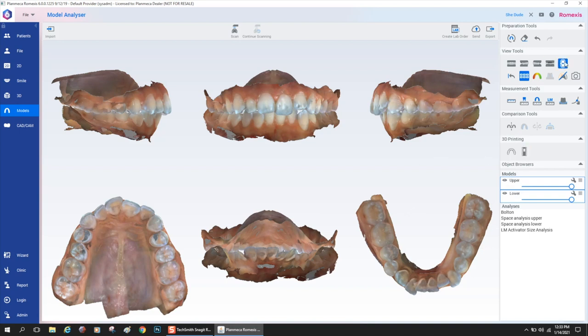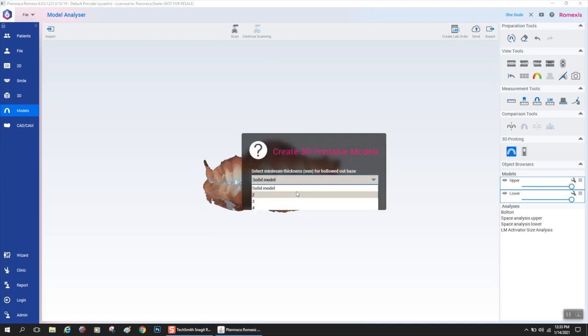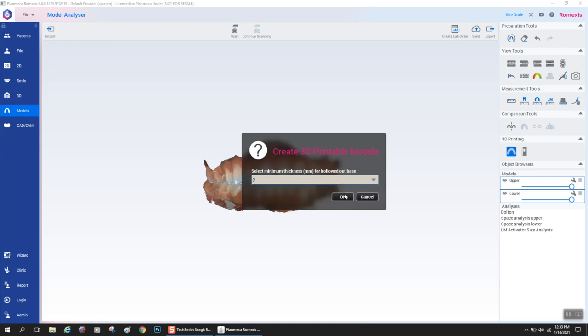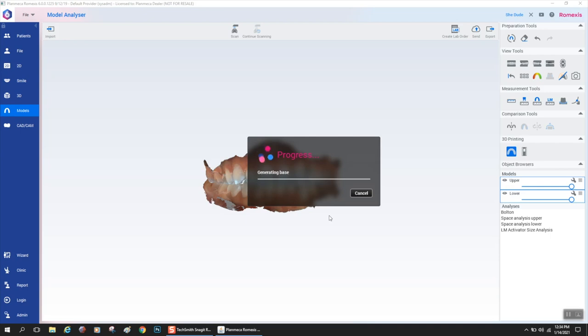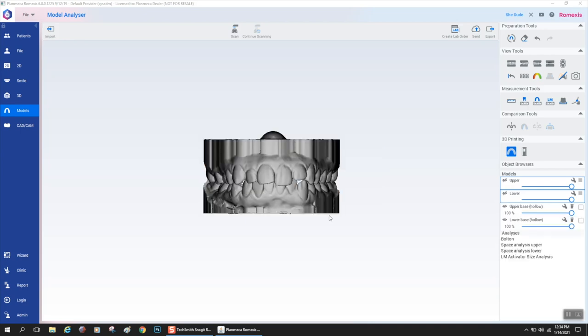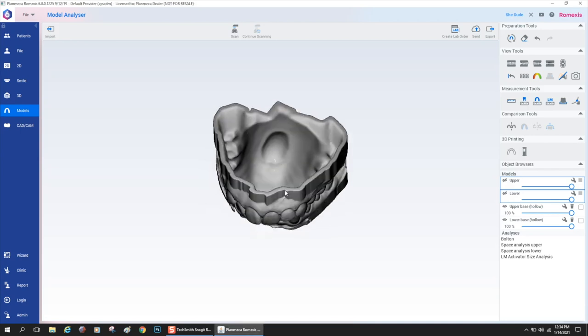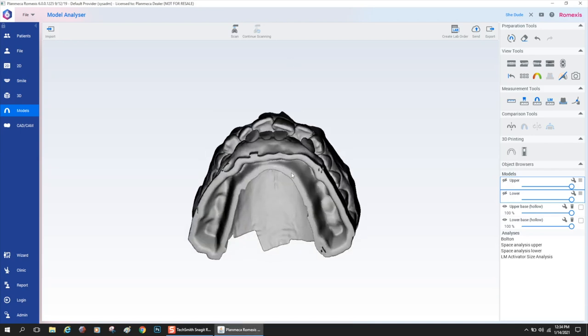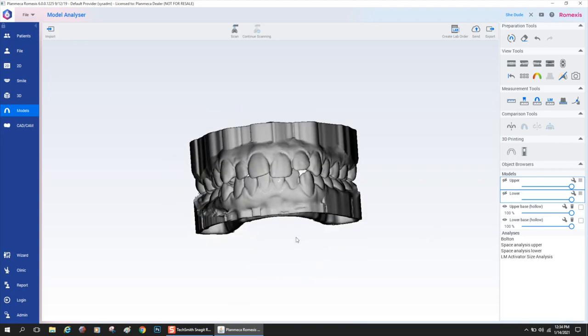So I'm going back into this really cool view. The next step is to create a hollow or a solid model. Two is for a two millimeter wall thickness of your 3D printed model. So you hit that, and the software is going to power through an algorithm and generate a model for you to print. Look at how beautiful that is. Now we have a perfectly hollow model ready for 3D printing flat on the build platform.